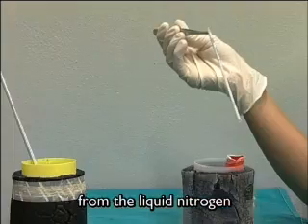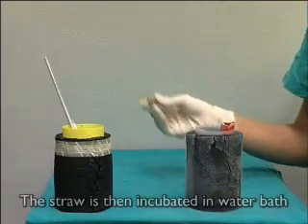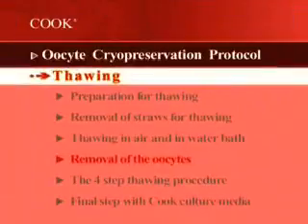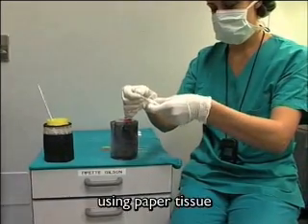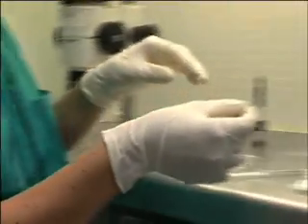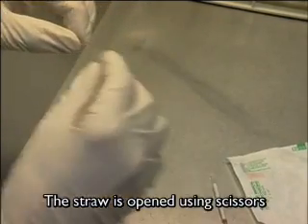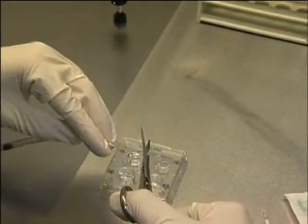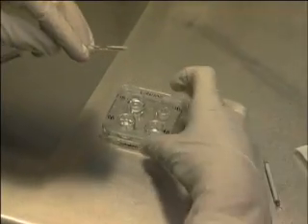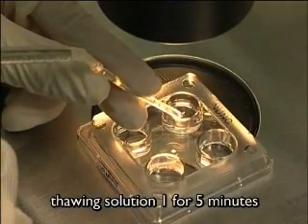The oocyte straw is removed from the liquid nitrogen and is exposed to the air for 30 seconds. The straw is then incubated in a water bath at 30 degrees for 40 seconds. The heated straw is dried using a paper tissue. The straw is opened using scissors.